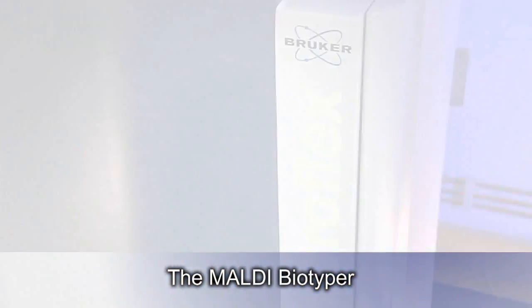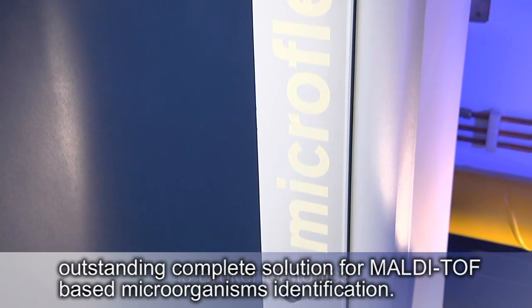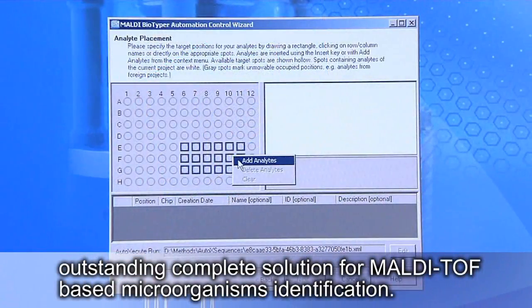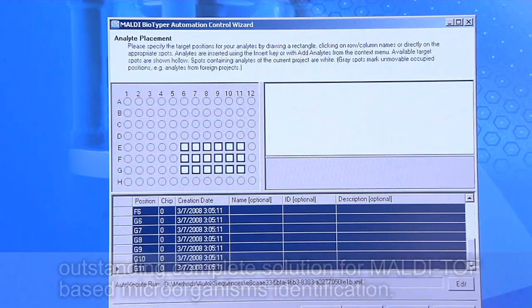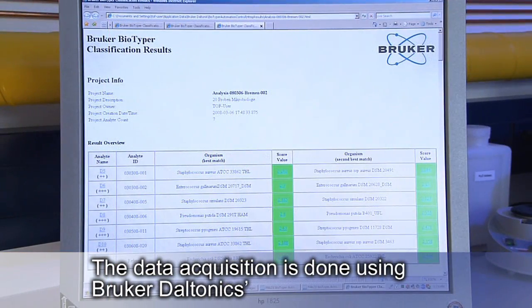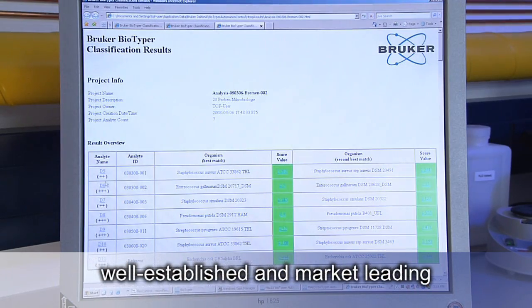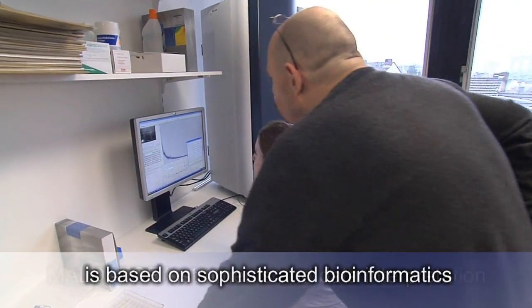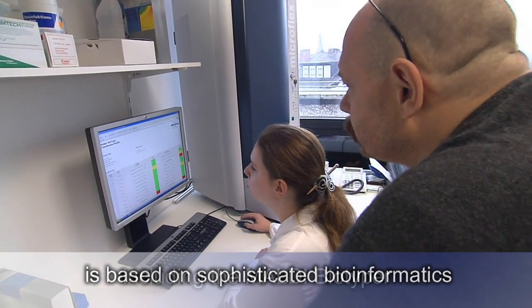The Maldi Biotyper is Bruker Daltonic's outstanding complete solution for Maldi-TOF-based microorganism identification. The data acquisition is done using Bruker Daltonic's well-established and market-leading Maldi-TOF instruments, and data interpretation is based on sophisticated bioinformatics.